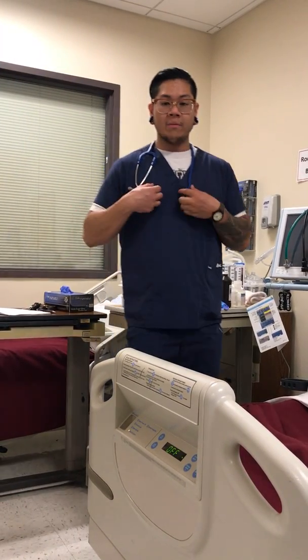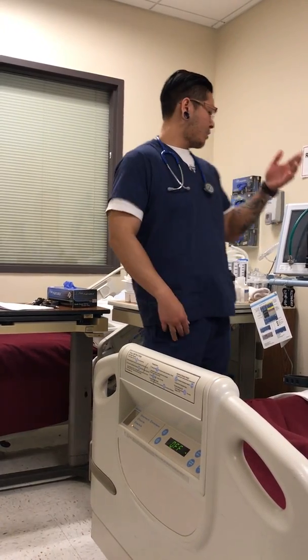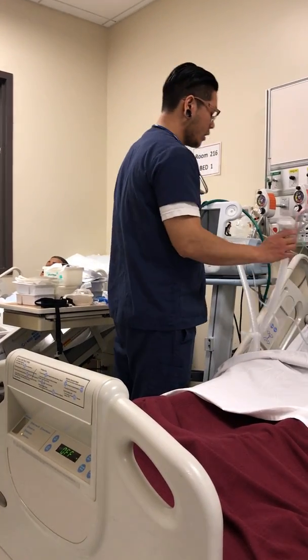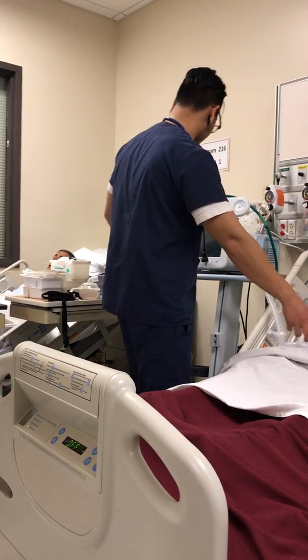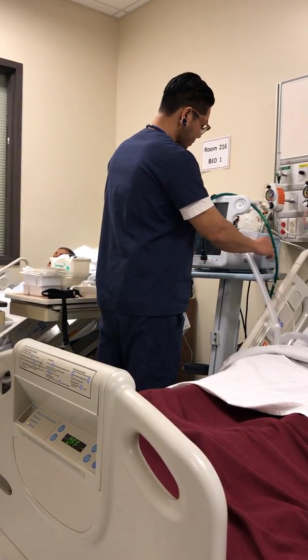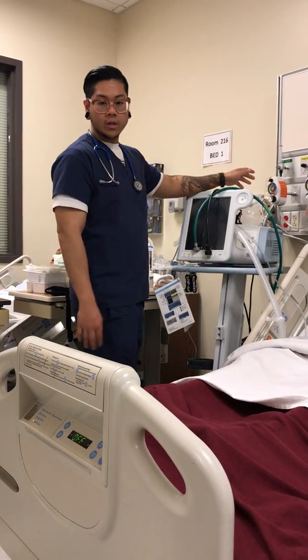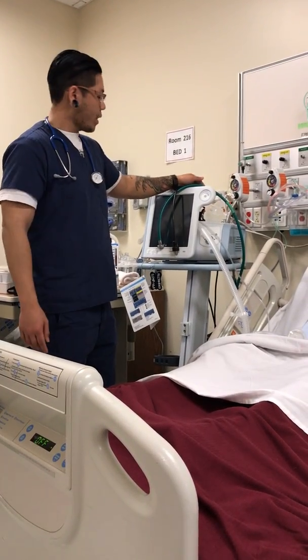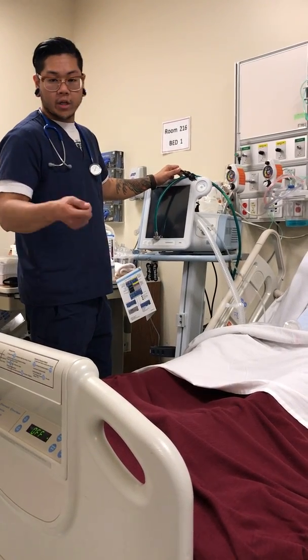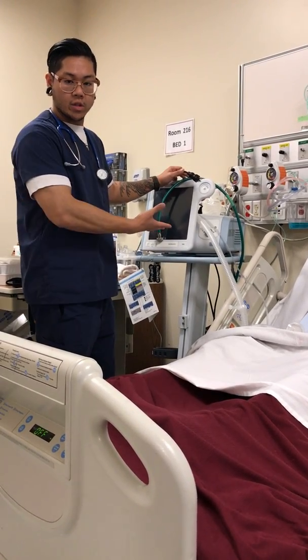So today, I have stethoscopes. I'm going to assess the patient first, and then before and after. I'm going to have the vent, my corrugated tubing. You're going to want the filter with the expiration port, and then you have the pressure line. And then oxygen. You're going to connect to the wall if they were on oxygen, and then the plug, which you're going to plug into a red outlet because it has a backup generator in case anything happens, the vent will still be working.